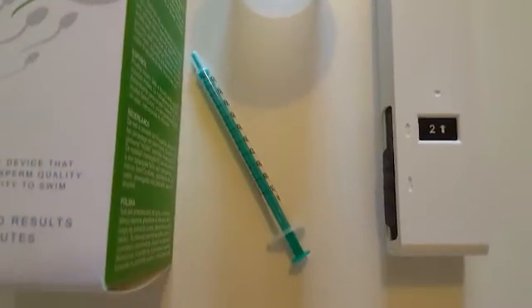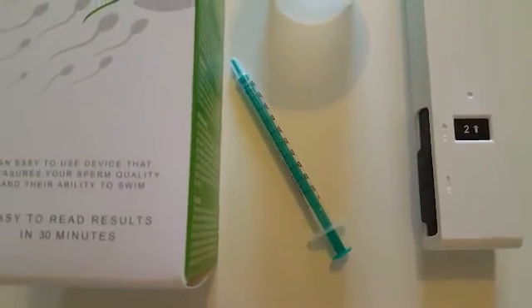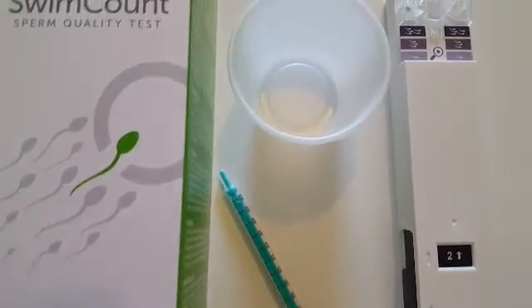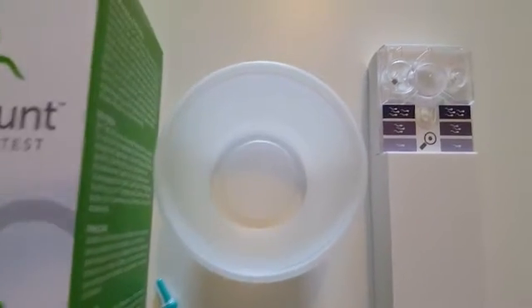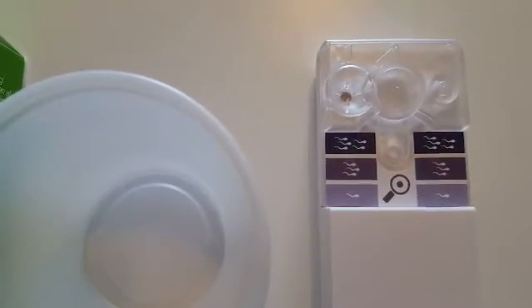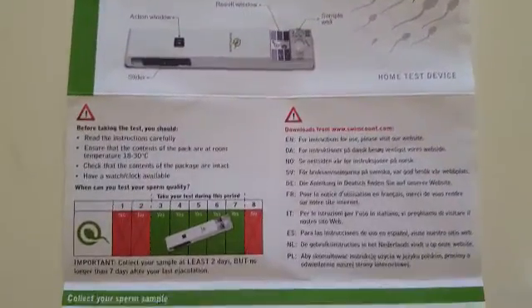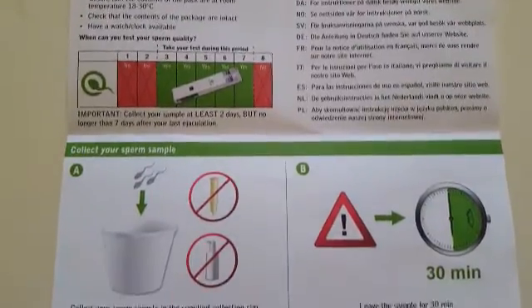There are a couple of important points to note prior to using this test. First, you should not ejaculate for two days prior to taking the test — this is to make sure that the concentration of sperm in your sample is at its best. Make sure you collect the whole sample; if there is any spillage then wait two days and collect a fresh sample.